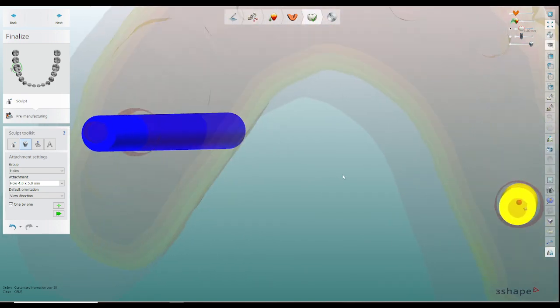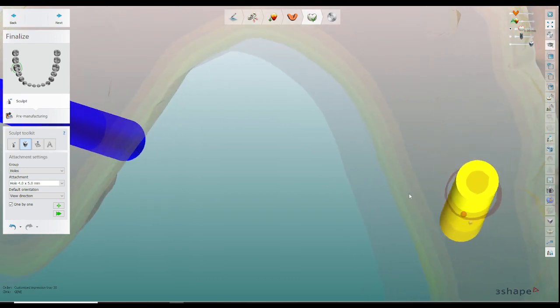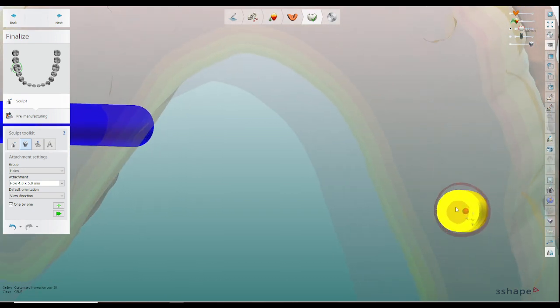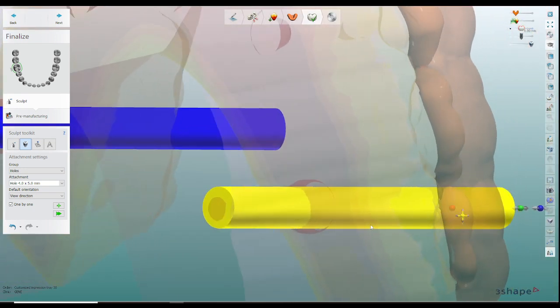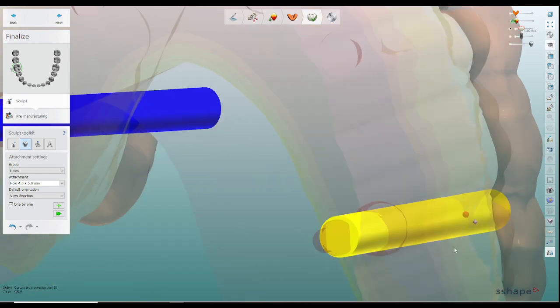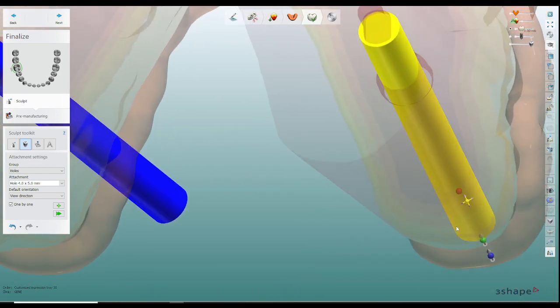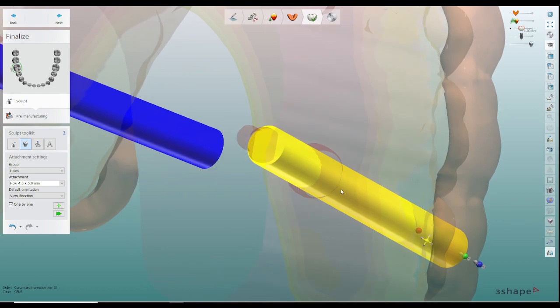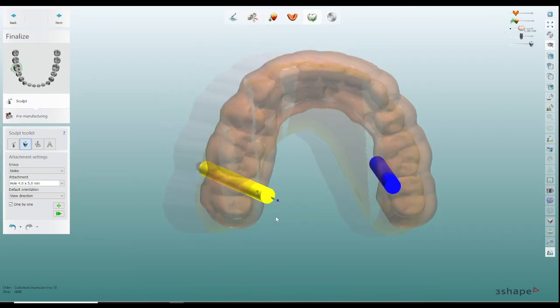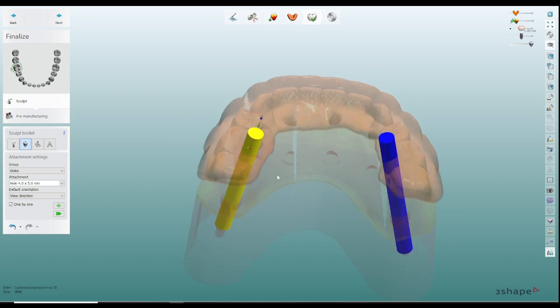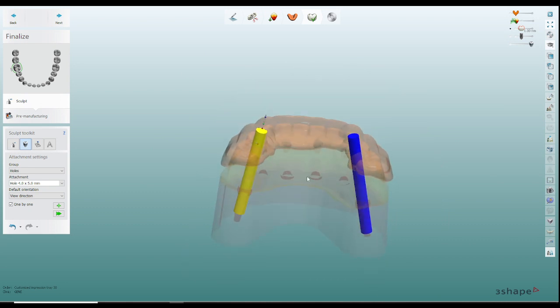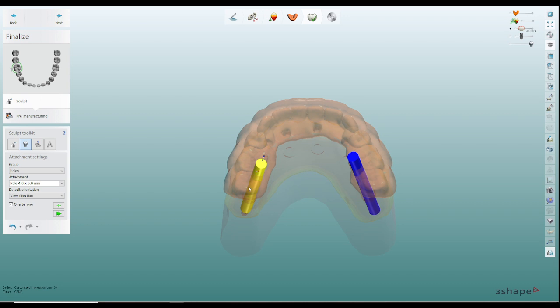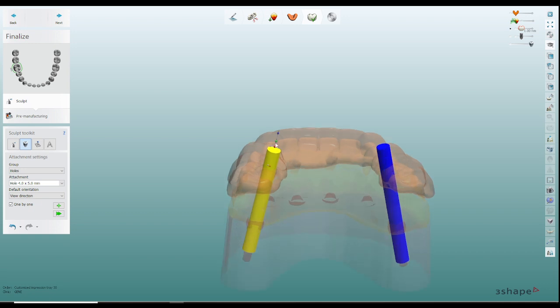The reason why I make it smaller on that end is so I can see if it's all the way around here, but even if you don't make it rounded like I do when you start sliding it back you can kind of see where it's lining up so it's pretty close. So I usually just did it like this before and printed them and then I made a little tube that I've modified to place in there and drill the holes, but now I've changed things out a little bit to make it easier.